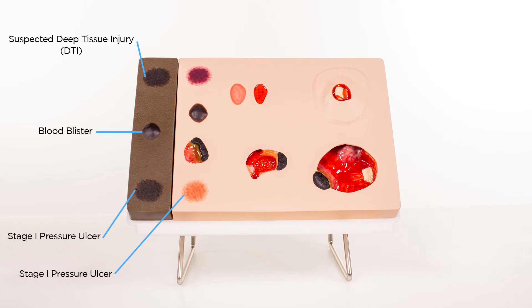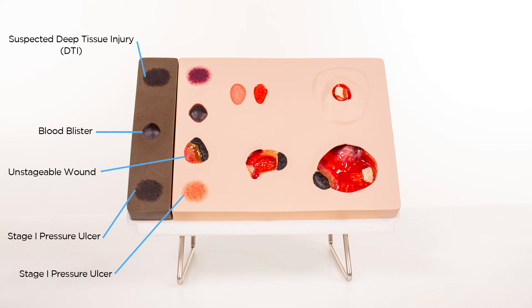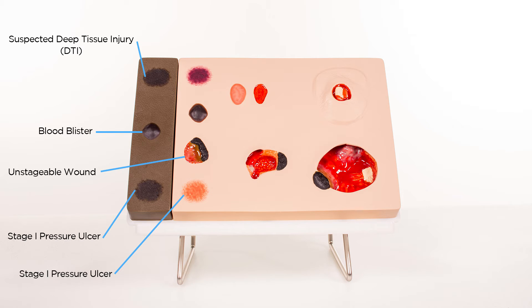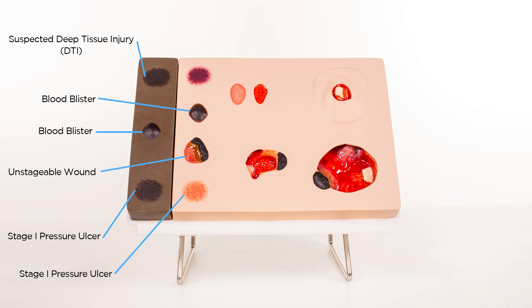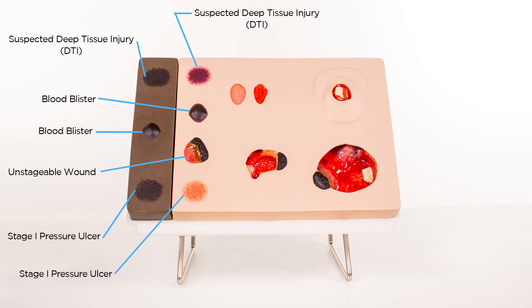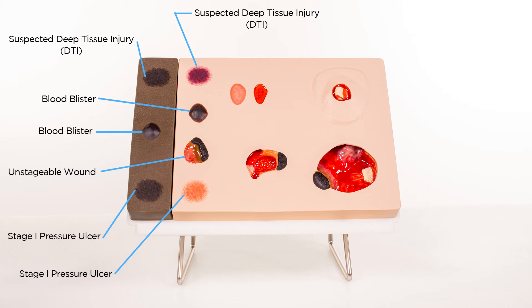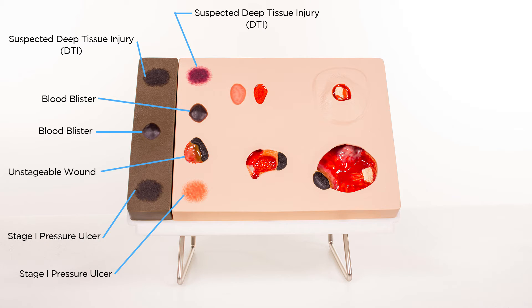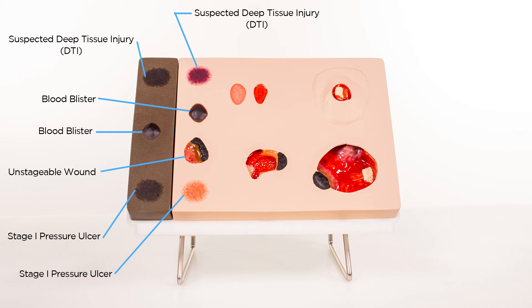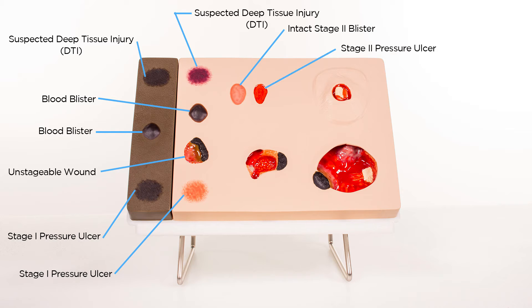Stage 1, an unstageable wound with eschar and slough covering the wound bed, blood-filled blister and suspected DTI also having the soft, boggy feel. The next wound is an intact and open stage 2 wound.